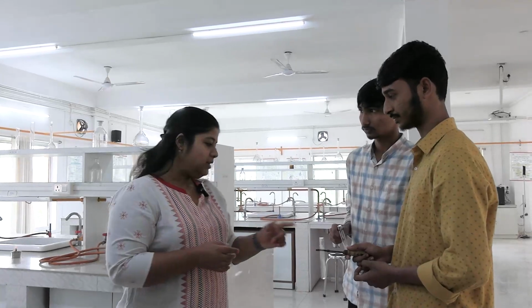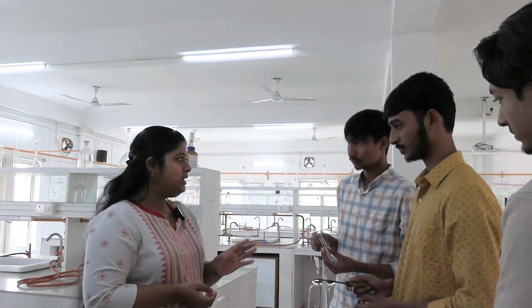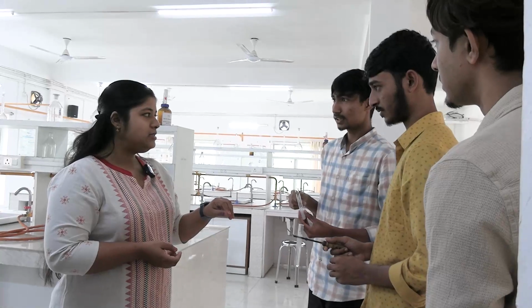Clear? And this is the sulfosalicylic acid test, and the principle behind this is the same, that is denaturation of protein. So we don't heat this sample, we just add the salicylic acid. How much? 5 drops is enough, in 3 ml of sample. We will add the salicylic acid and there will be an overall cloudiness.